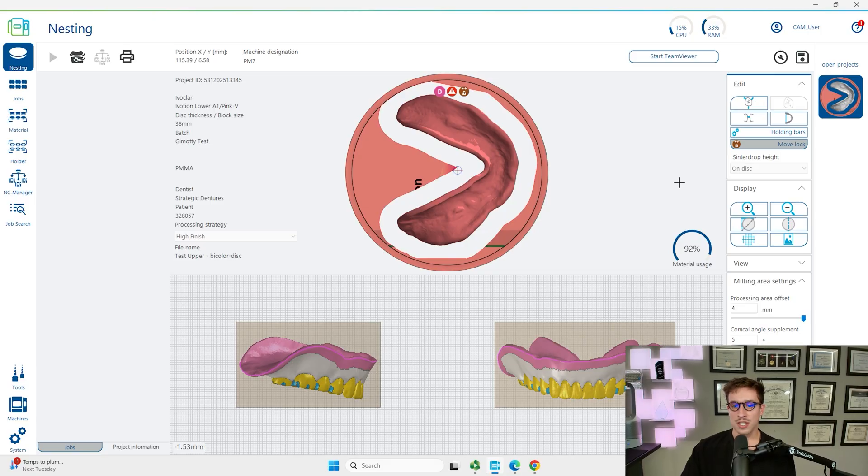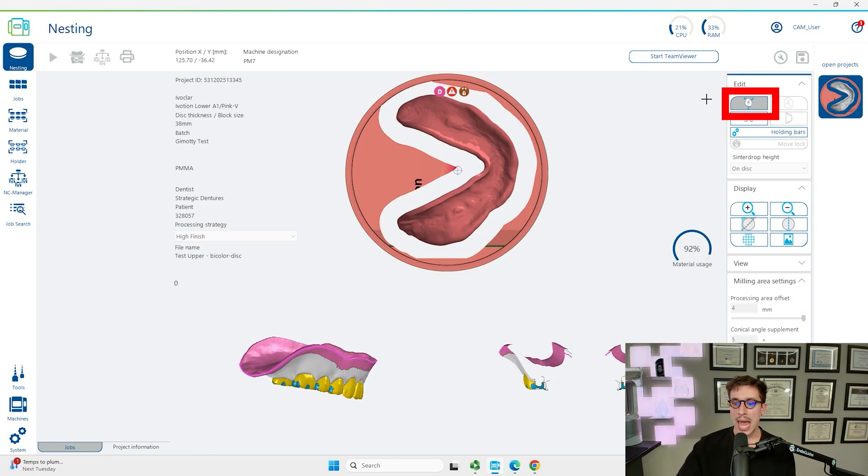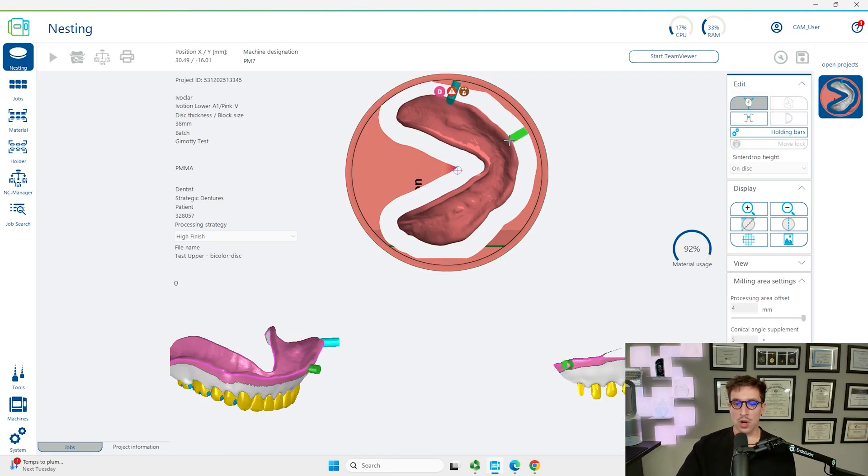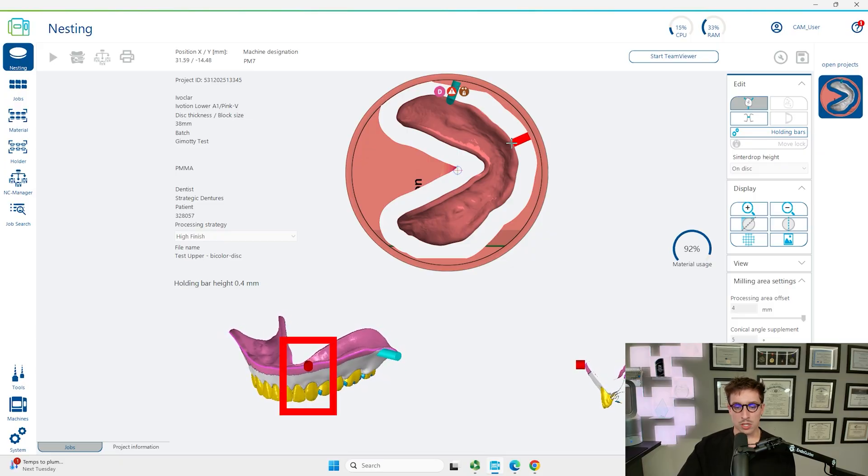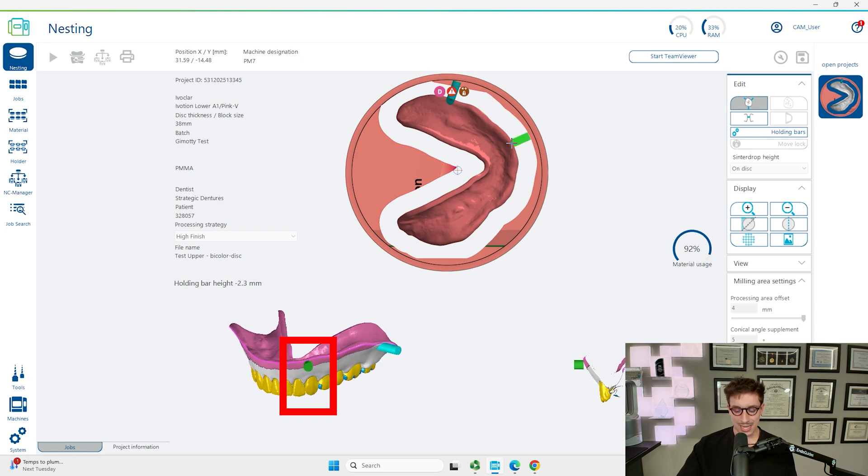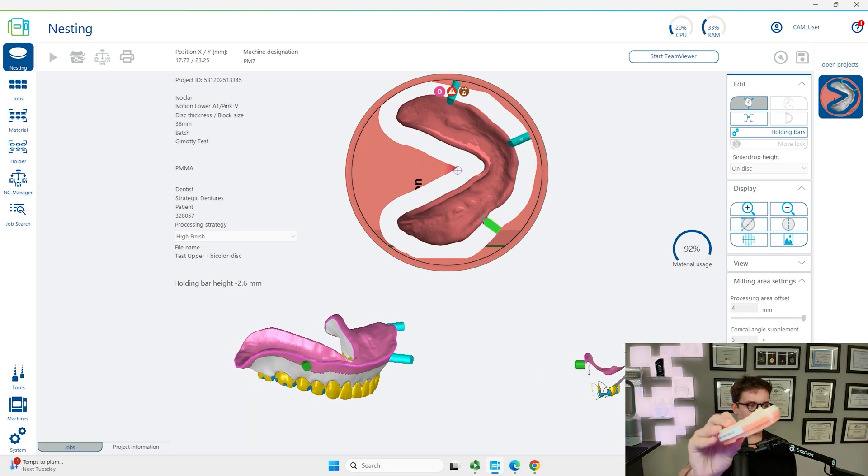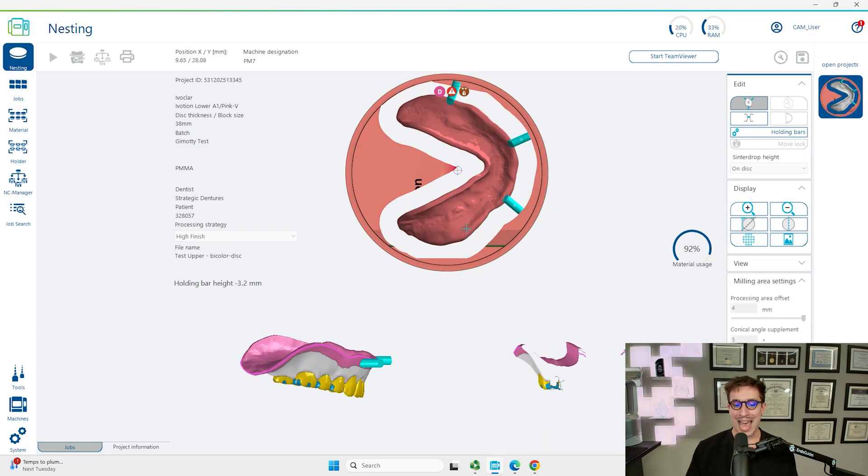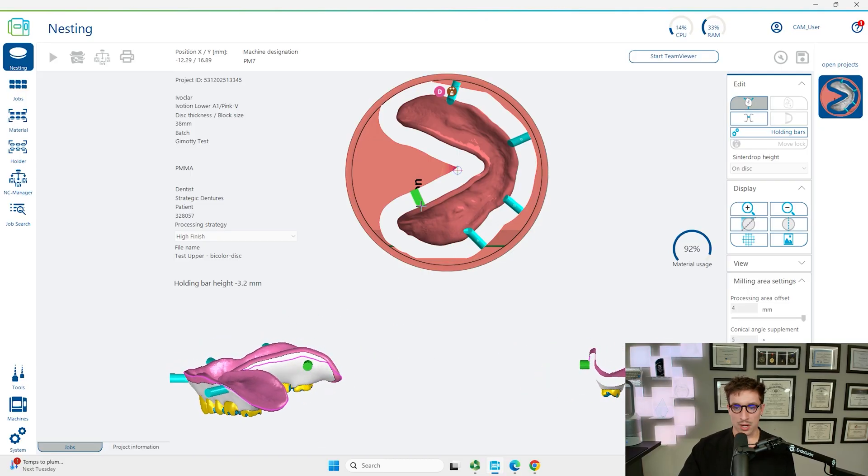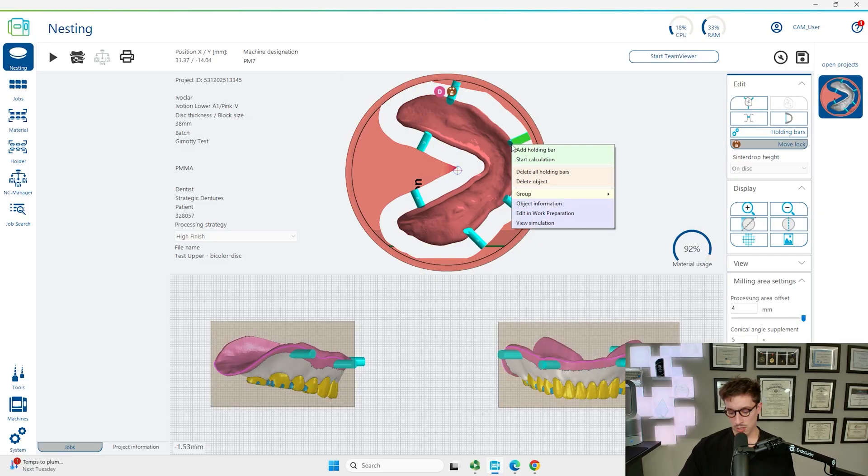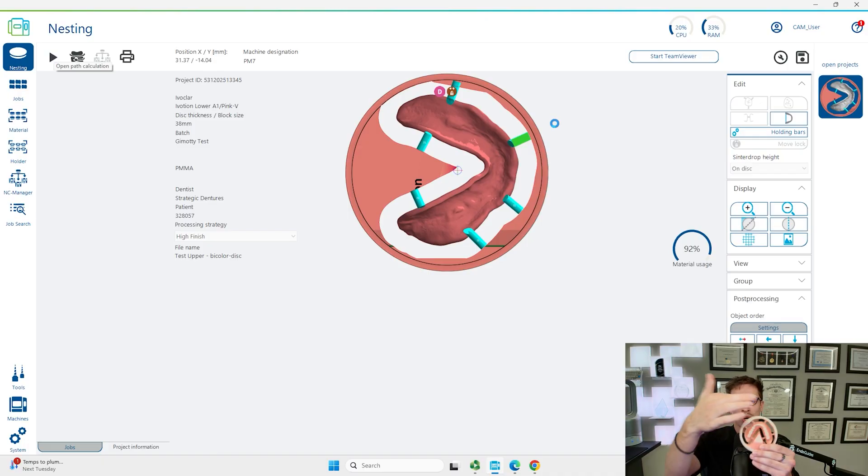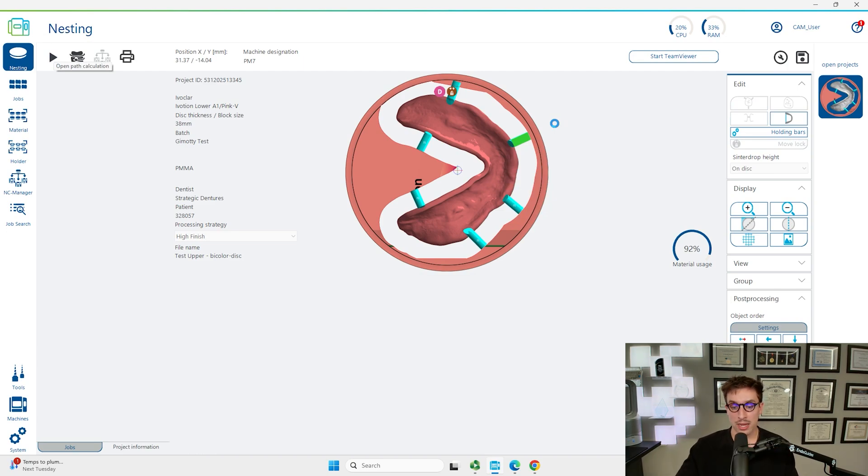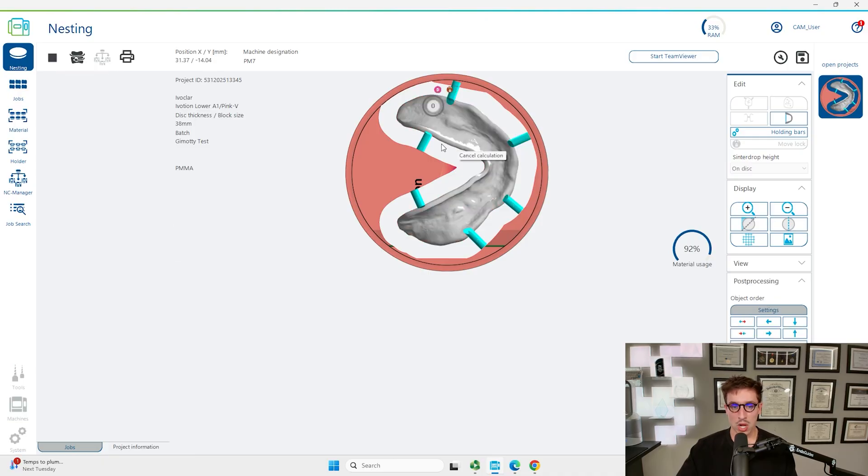We're going to set the conical angle supplement to half, around five degrees for it. We're going to set those both to those values and then we're going to add the sprue support. You can see up here we've got edit, and we're going to choose sprues. We're going to hover over the border of the denture and use your mouse wheel to scroll up and down to move it. These are very sharp spiky sprues and you're going to have to remove these, so ideally we don't want these at the height of the teeth. For the mandibular denture, I'll do four on the outer border and then two on the inner border towards the lingual portion. We're going to hit the play button in the top left corner which will send it off for calculations.